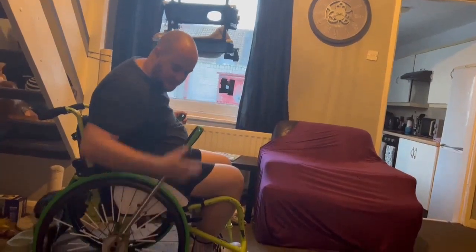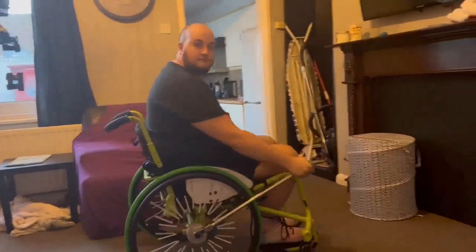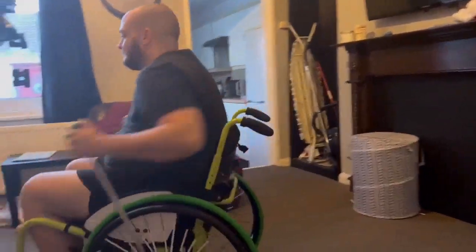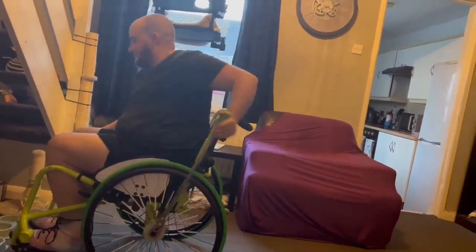Let's go straight into the side of the hub and then you turn. Just use one, and then go back. And so pop curbs, pull the wheelie, all that good stuff.